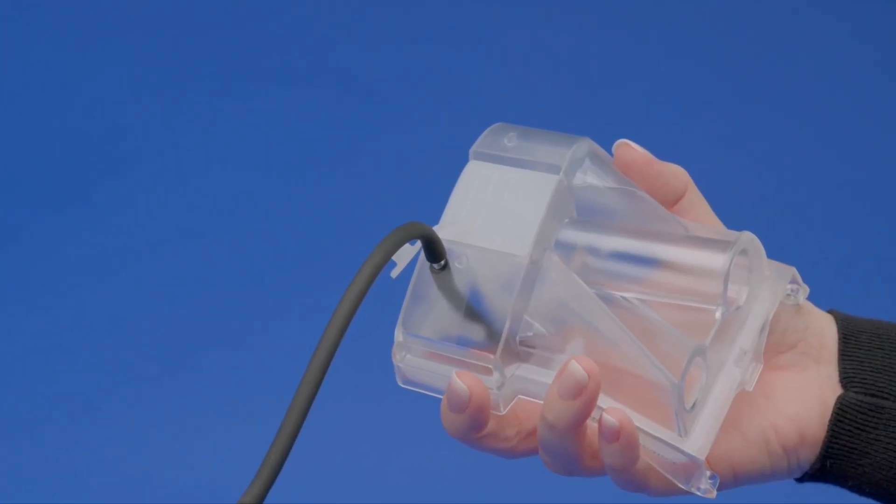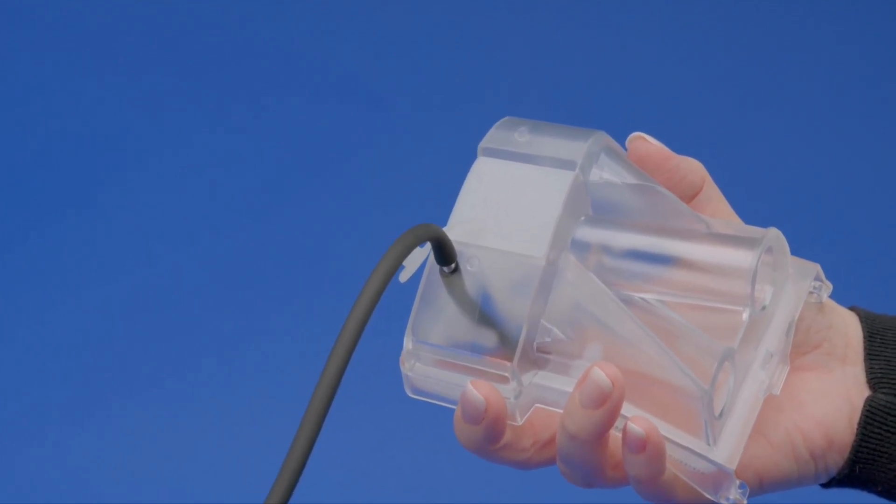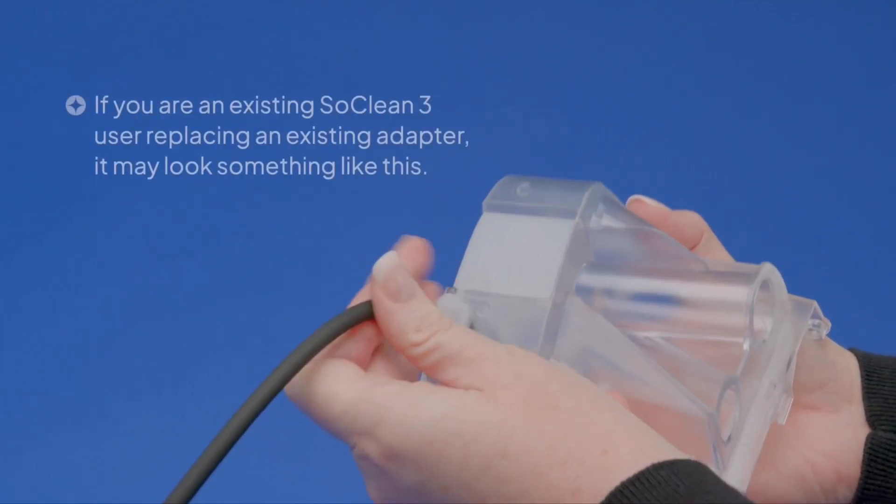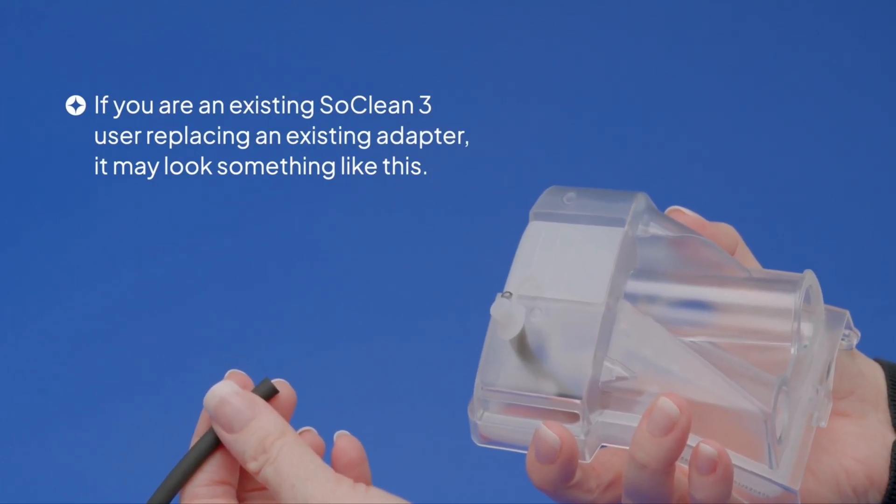If you are currently using another type of SoClean adapter that is attached to the ozone tube, disconnect the ozone tube and remove the adapter from your sleep equipment. Save the old adapter in case you need it in the future.